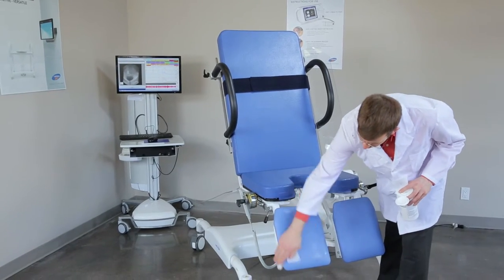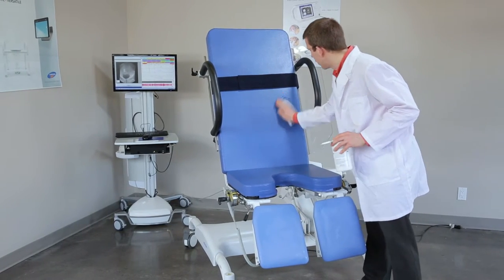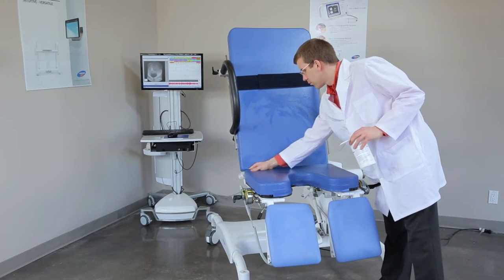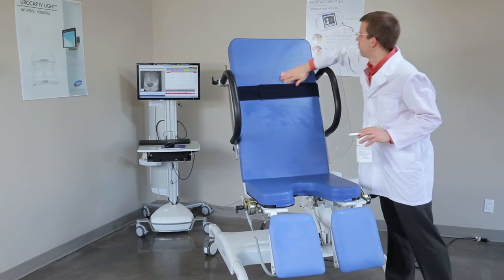The cushion can be cleaned with rubbing alcohol, 70% isopropyl alcohol; bleach solution, 10% household type bleach in cold, cool or warm water; or general purpose soap or detergent type cleaners such as 409, at their normal manufacturer recommended strength.